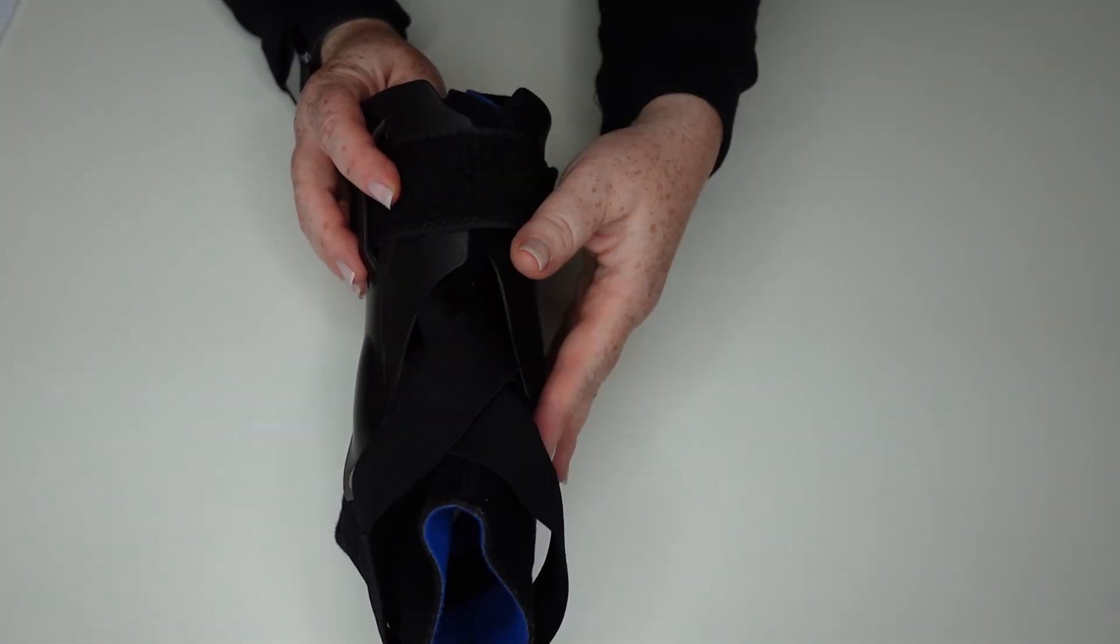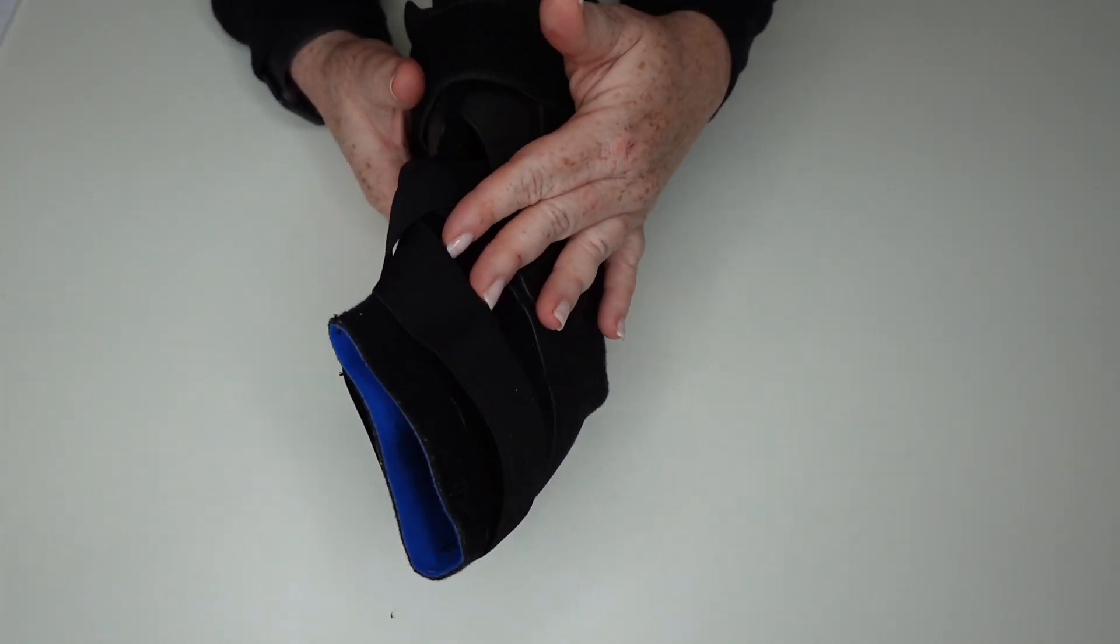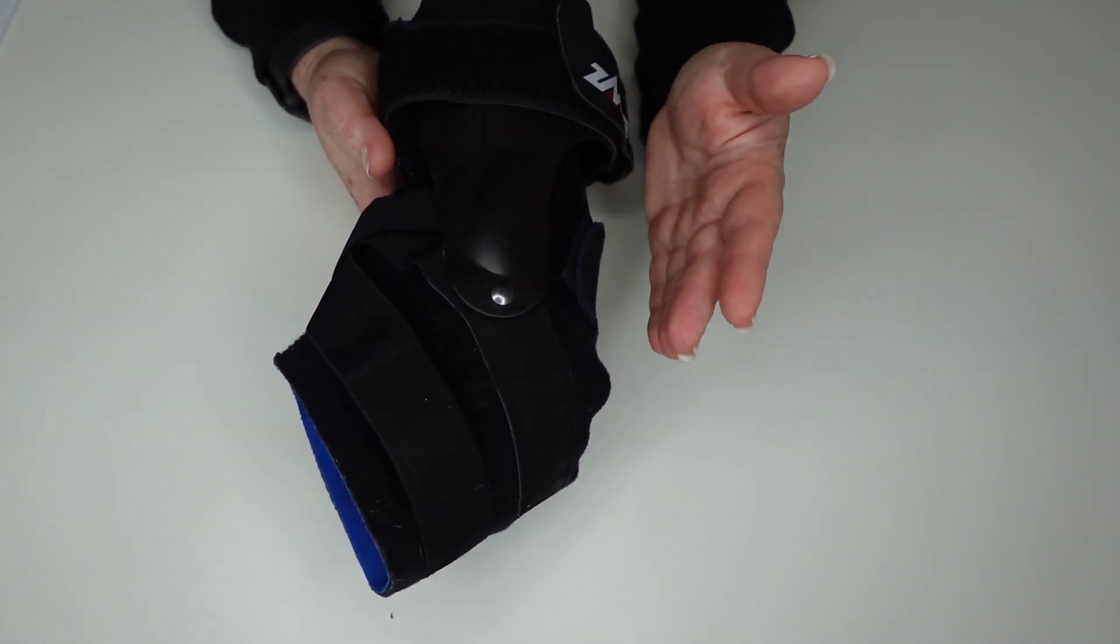You've got a three-way support system around your ankle here, so you're getting excellent support that's not going to be cutting off any circulation, but giving you just the right amount of support that you need to feel safe and confident going about everyday activities.